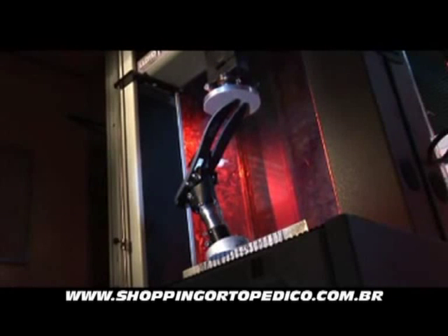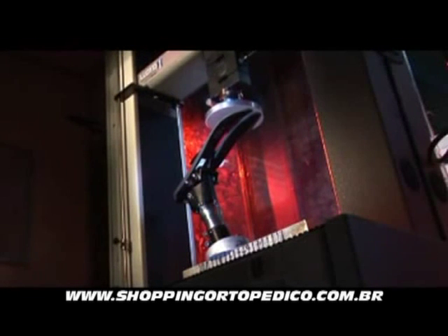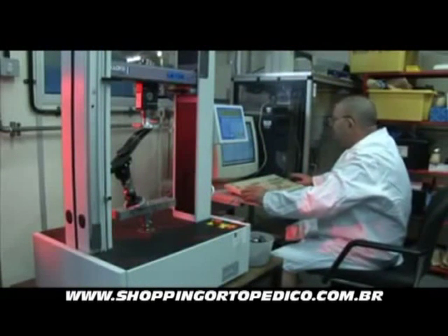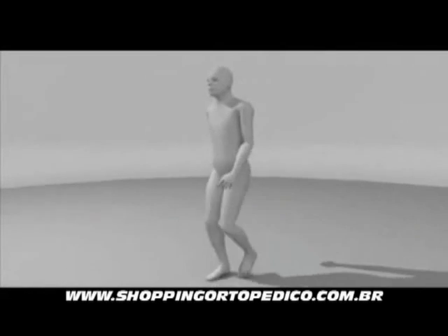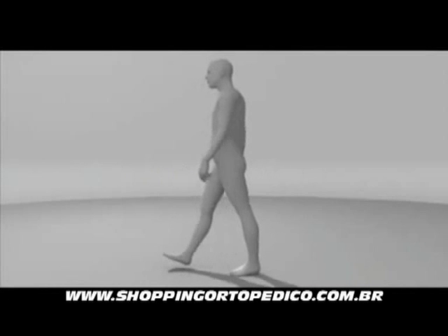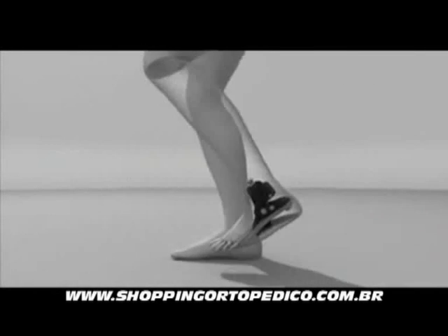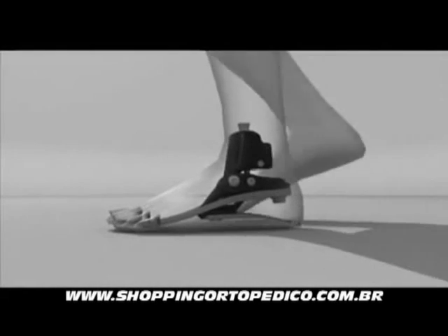This is a quantum leap in quality. The mechanical and hydraulic design teams faced an extraordinary challenge in developing this foot because it's extraordinarily difficult to design a structure that mimics the way the natural body works, but can also withstand repetitively all the impact loads seen in a natural foot — surviving both rigorous testing and prolonged use in the field. What we found with the hydraulics introducing the ankle is a very new way of understanding and analysing the biomechanics of feet.